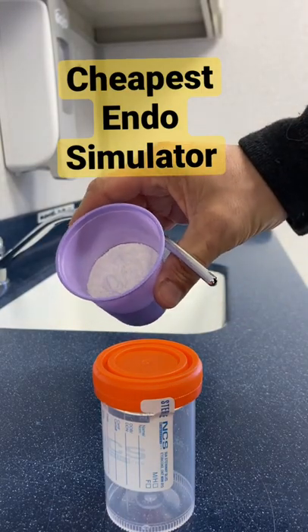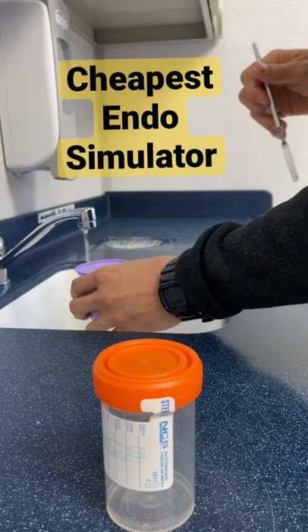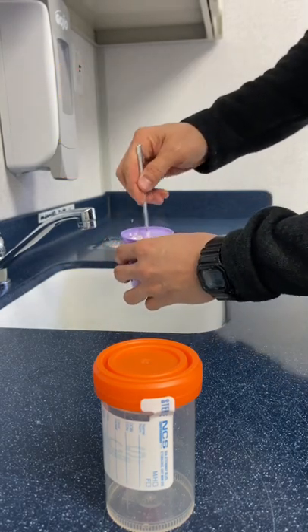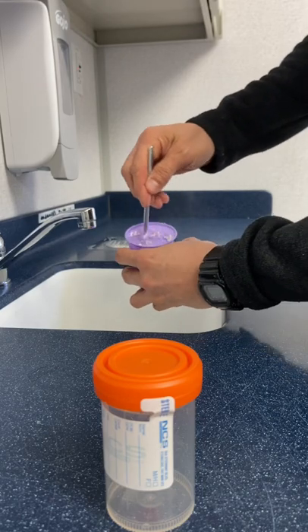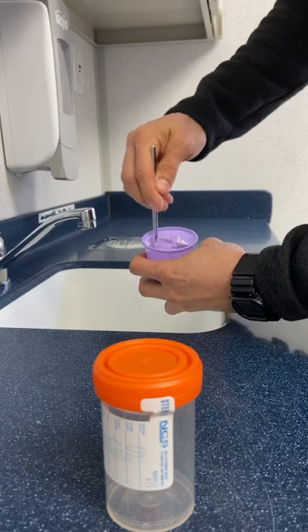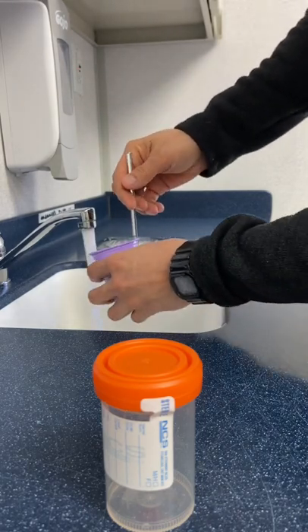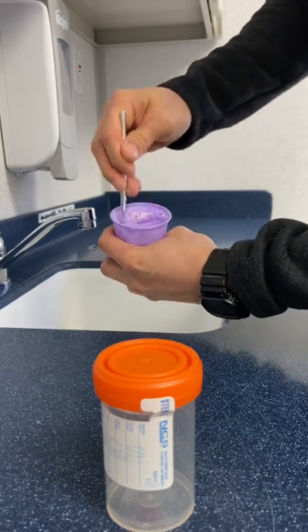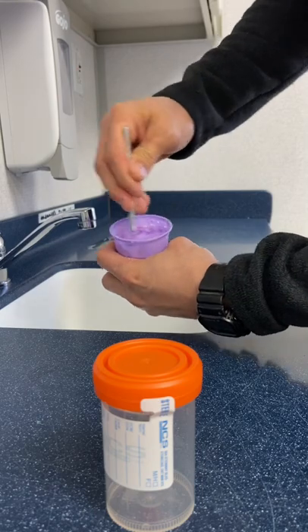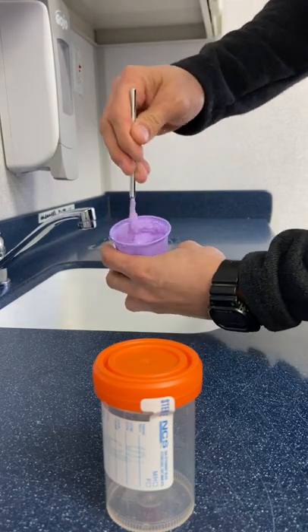To simulate the PDL for teeth, take some alginate and add lots of water to it. We're not going to worry about powder-to-water ratio — actually adding water to powder, going backwards. We want to make it really, really soupy. Mix that up and add a little more water to make it super soupy. You can use a regular alginate mixer, but this is just easier. Let that settle.